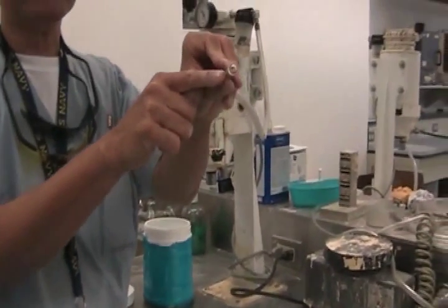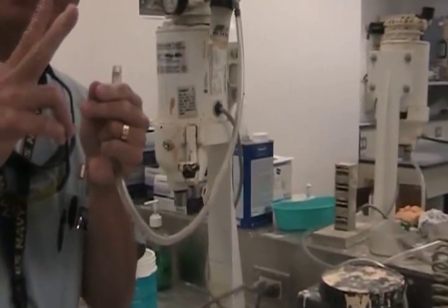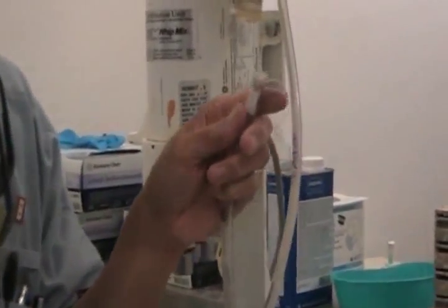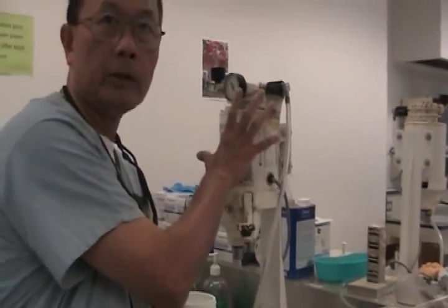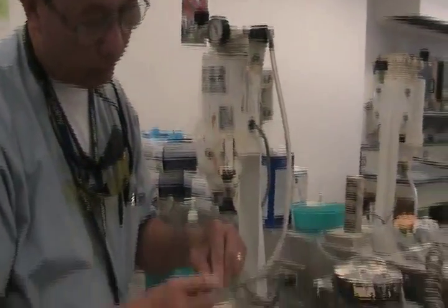That's also clogged. You can see the stone in the filter. If you need to change the filter, just get a piece of 2x2, roll it, stick it in there — it works just as well. But don't use it without any kind of filter, because it'll plug up the whole machine. The stone will end up here, and you just wasted the whole machine.